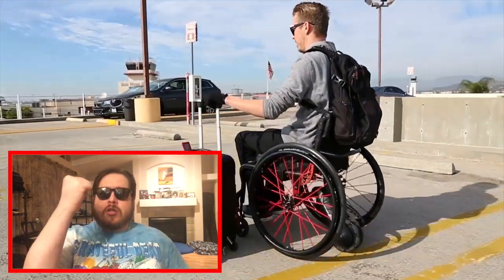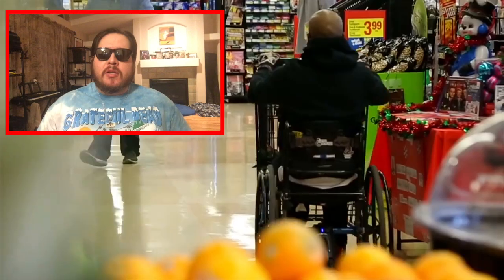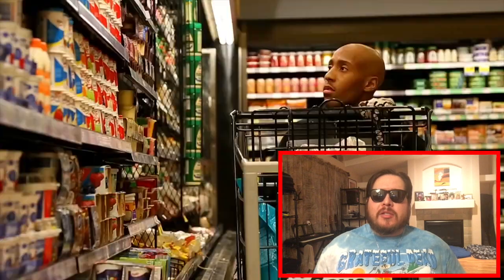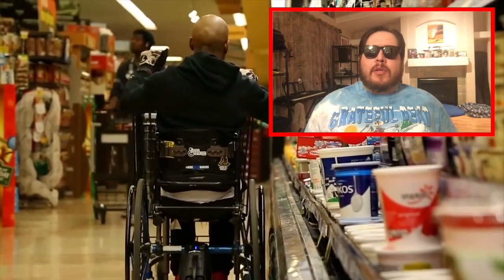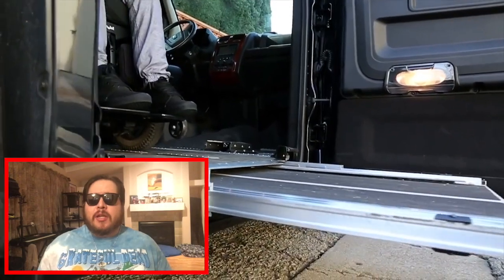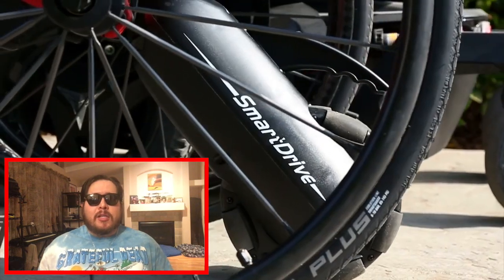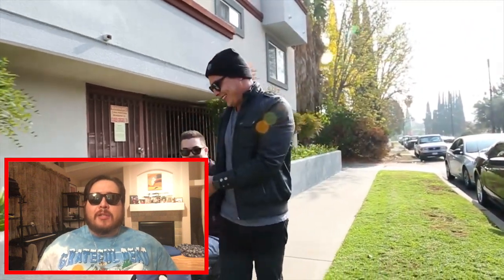You've got a watch, and you just kind of bang your wrist on the thing twice and it'll start going. When you get to the speed you like, bang it once and it'll stay at that speed. When you want to stop, bang it twice and it will stop. You can try and slow it down a little bit when you're turning with your hands, but it won't slow down too much — it's stronger than your hands. It'll just push right through your hands; you don't have the strength to stop it. That's a little bit scary, but once you get the hang of it, it's nice.